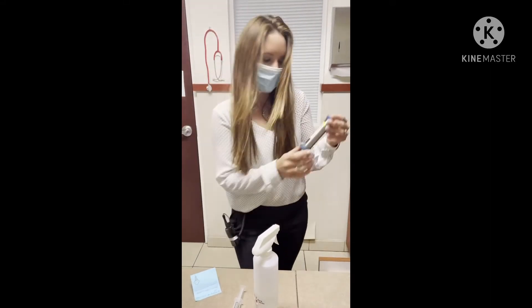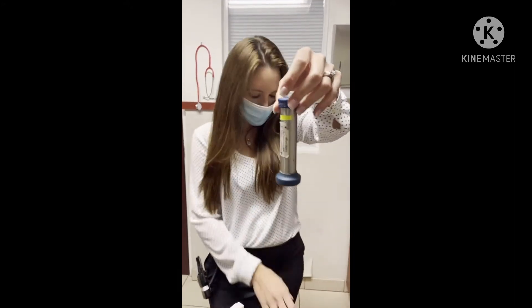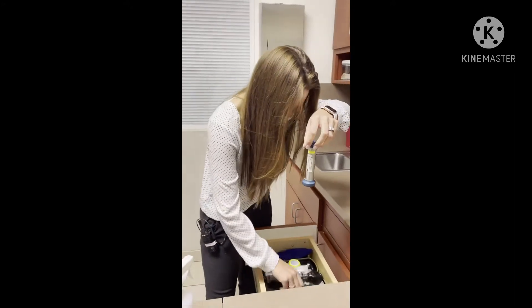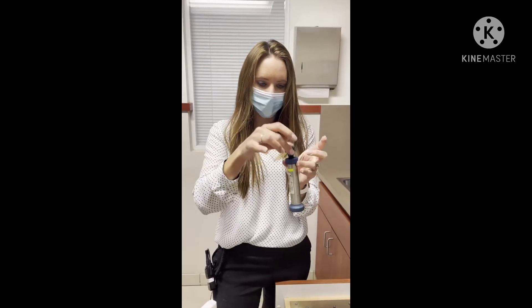In this video, I'm going to show everybody how to clean these. What these are is what we use to clean our otoscope ear checkers with. We normally stick them in here and clean them.